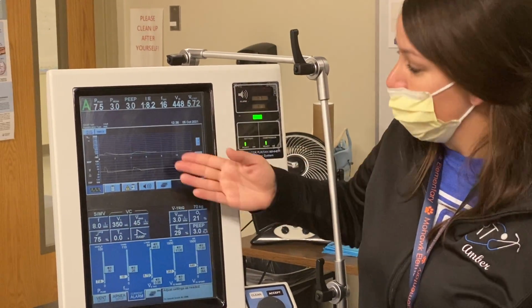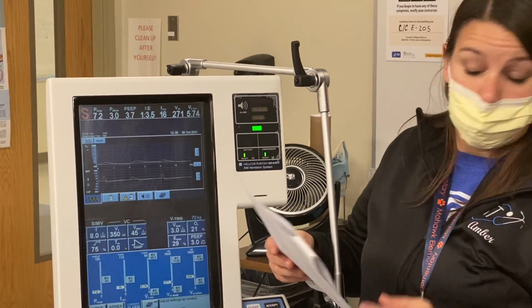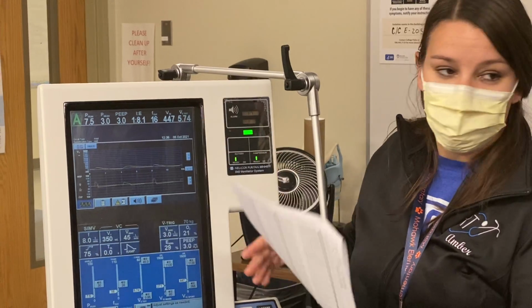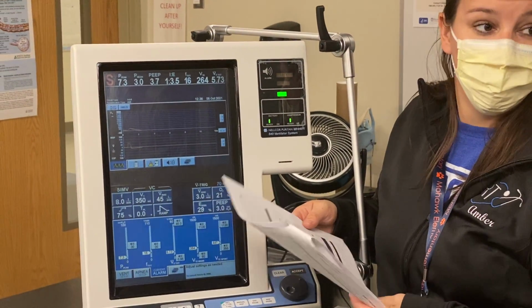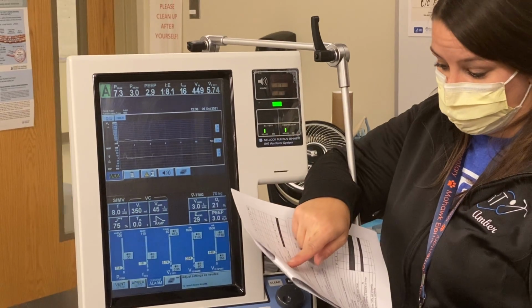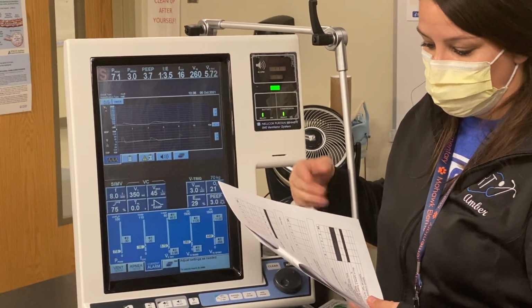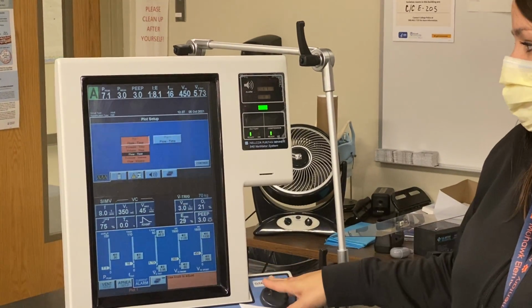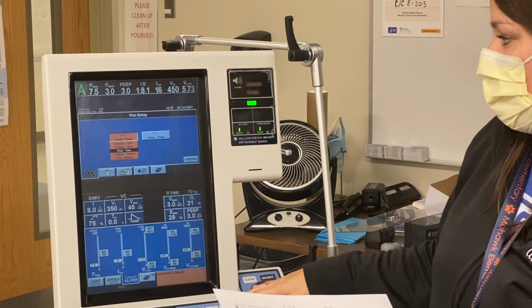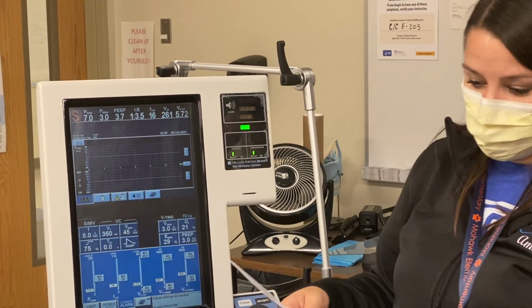But those are what we want to know, what ways you determine if there's a leak or not. Okay? Volume loss, volume pressure, volume time curve. Those are the ways to determine leaks. You can evaluate your graphics, go to plot setup on here, mess with everything. I prefer it like that.